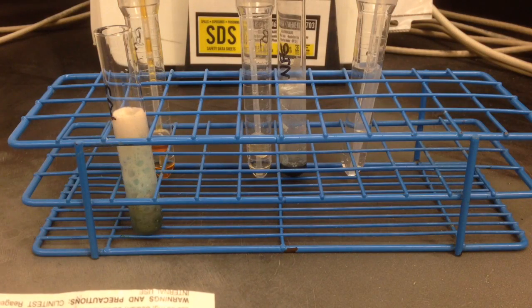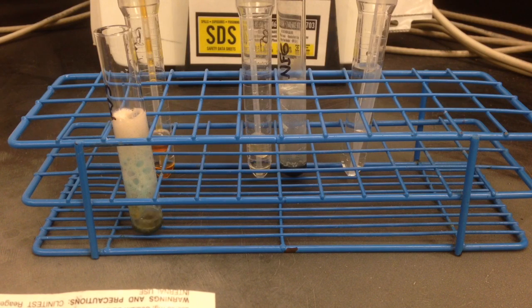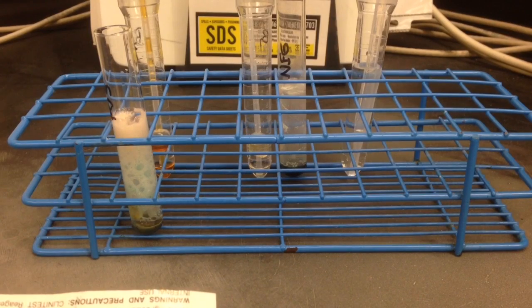And then my positive is still boiling, and you have to wait for that to stop, and then 15 seconds after that is when you can go ahead and mix it and compare it to your chart.